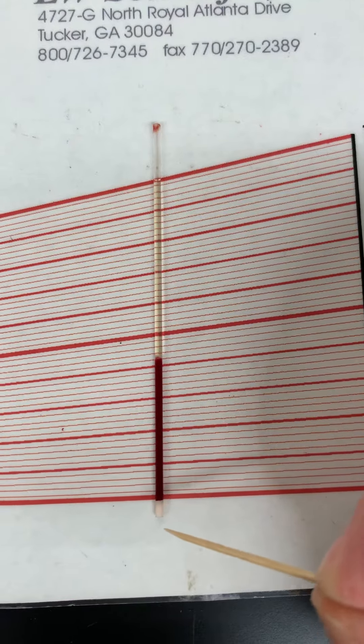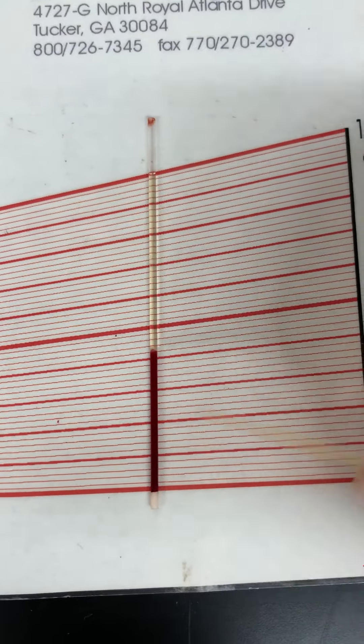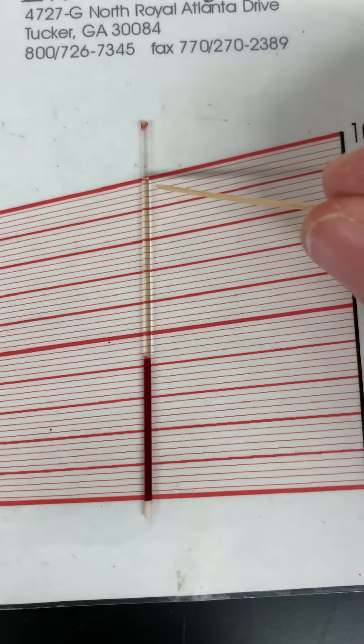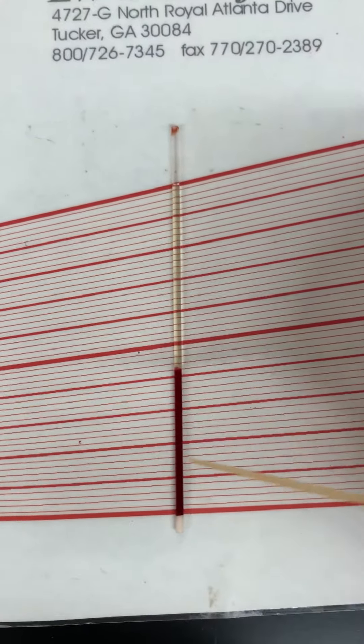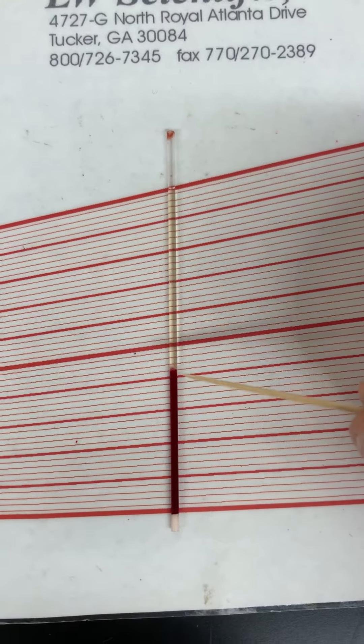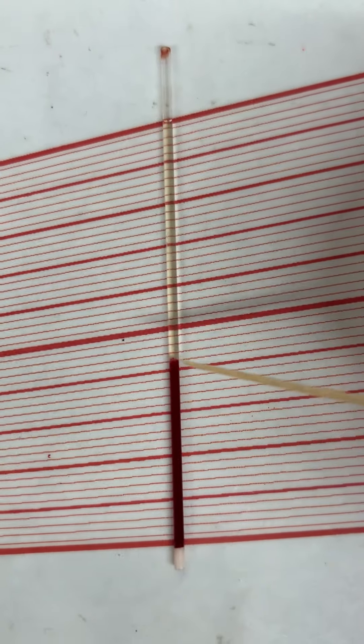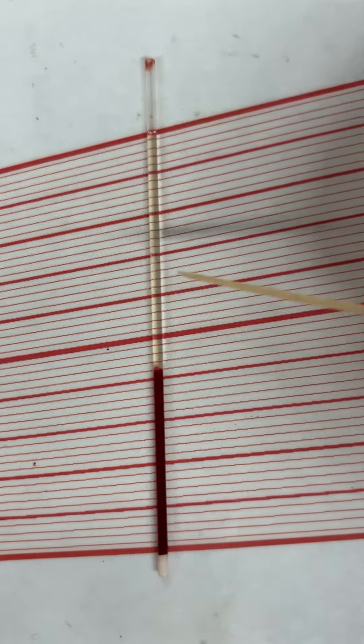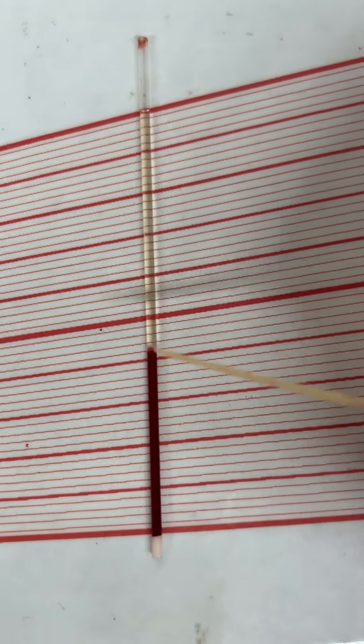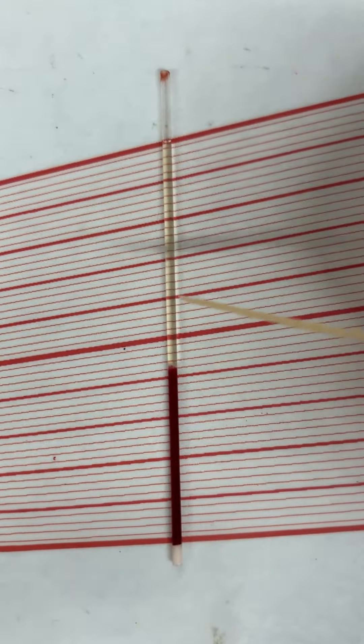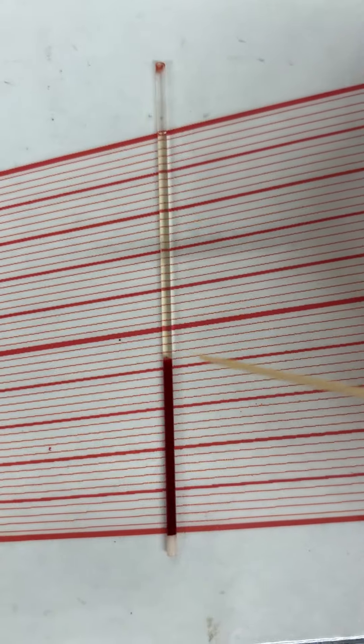So do you see how the red blood cells, and it's a little bit off, but the red blood cells should be lined up with the zero. The plasma's at the 100 mark, and then here's where my red blood cells end, and you can kind of see a little bit of that buffy coat. It's that white sort of colorish one. And notice how the plasma is clear and golden. That's what plasma is supposed to look like.